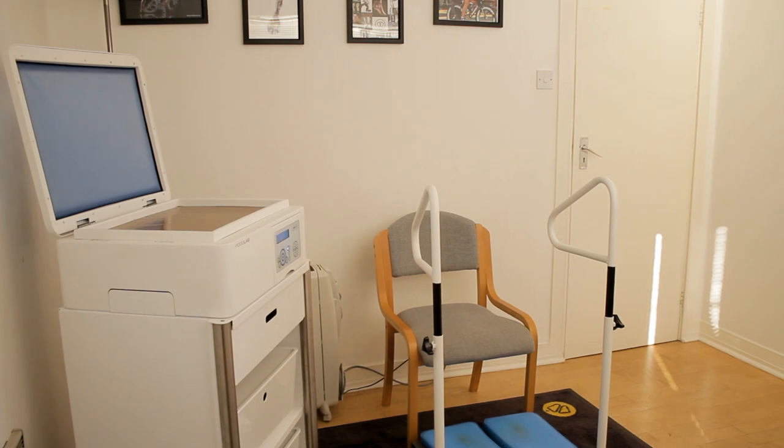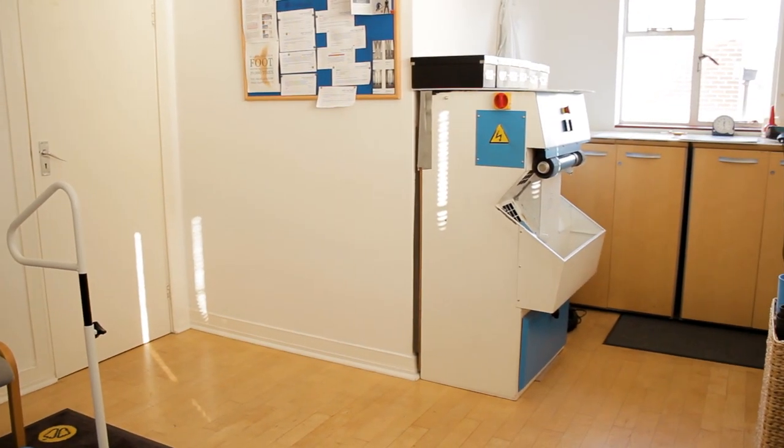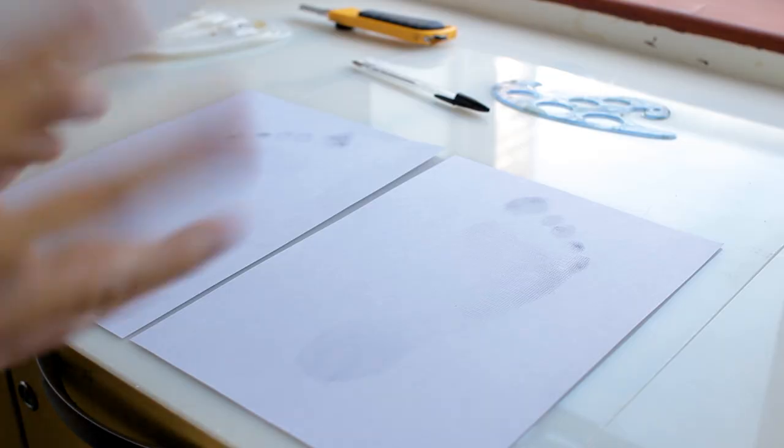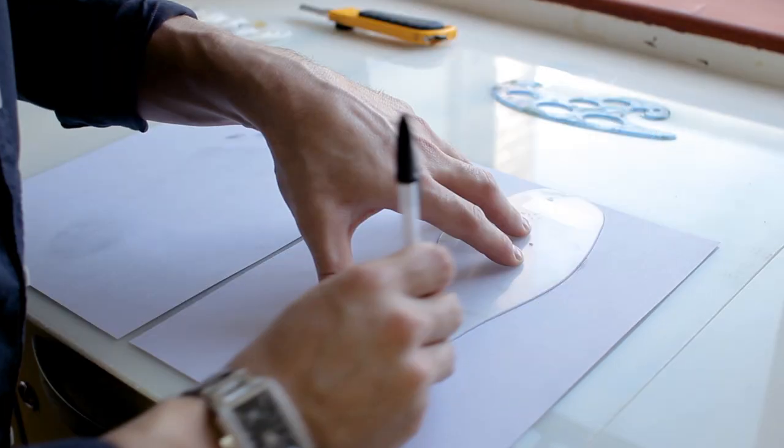We start the process of making the orthotics with you in the workshop, working with your footprints rather than your shoe size so your orthotics will fit into any shoes.